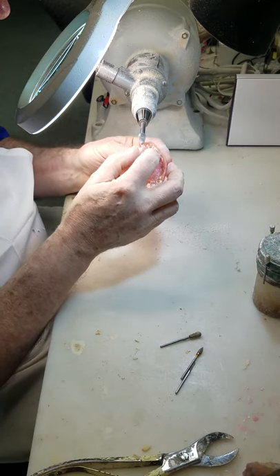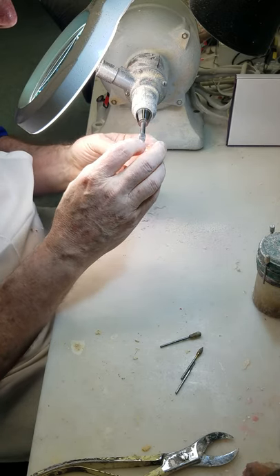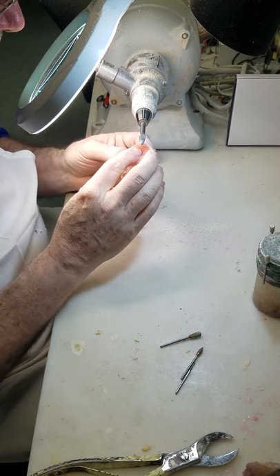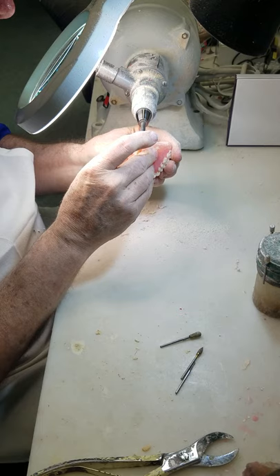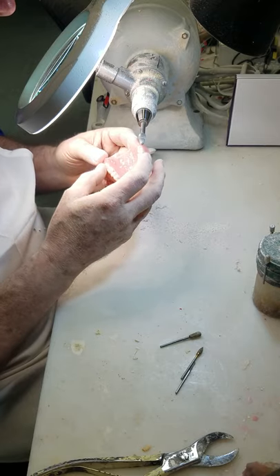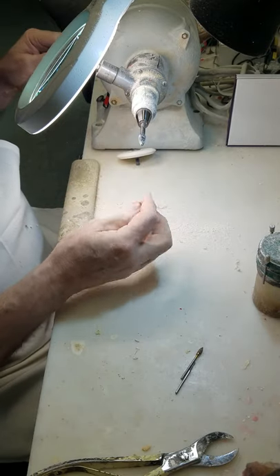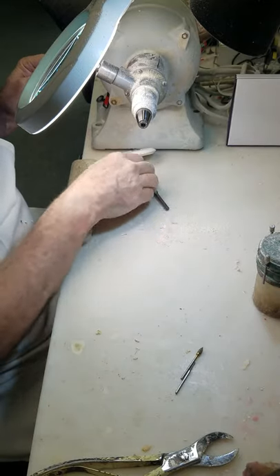The white wheel is a rough cut, so we'll take this just to make it a little smoother. That will save us buffing time. And if you are the buffer, that is good; if you are not, who cares, let the buffer buff it out. Some people will say this is just too big a burr to use, especially proximally. But it is actually smaller at the tip than this burr which I use for festooning.